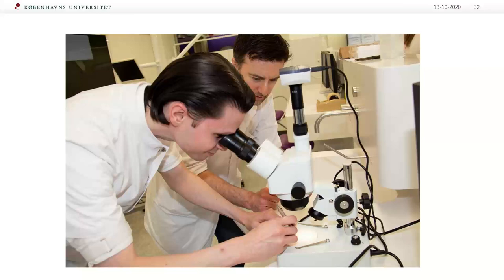If you try to sharpen a sharpen-free instrument, will it damage the coating permanently? That's right — you are damaging the coating, and that's why it's not recommended to sharpen these instruments. When the coating is worn down, it's also time to replace the instrument.